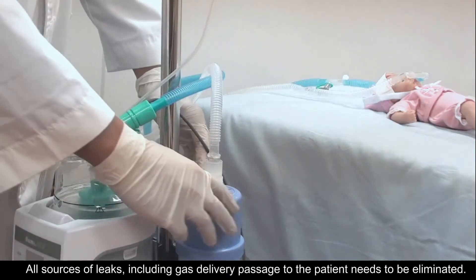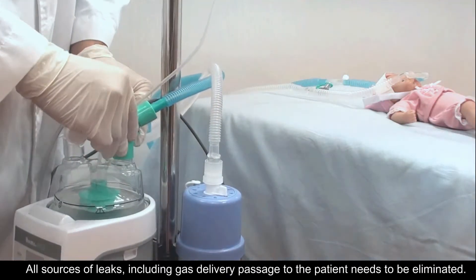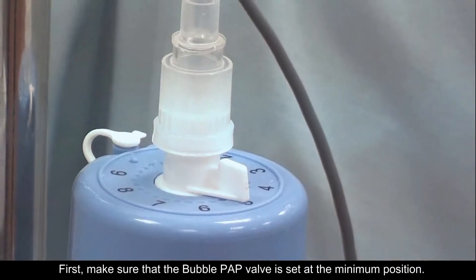All sources of leaks, including the gas delivery passage to the patient, need to be eliminated.